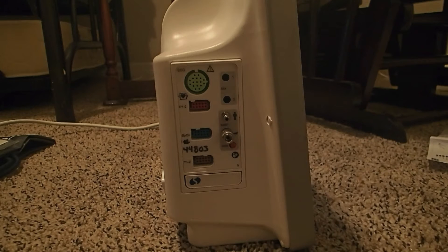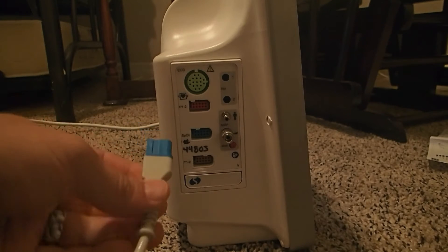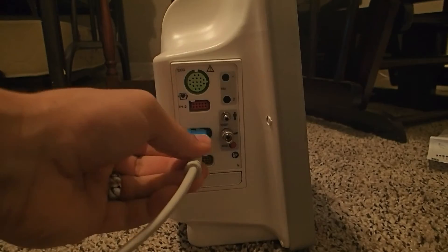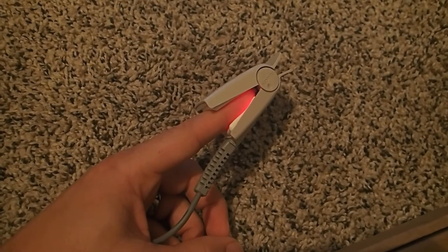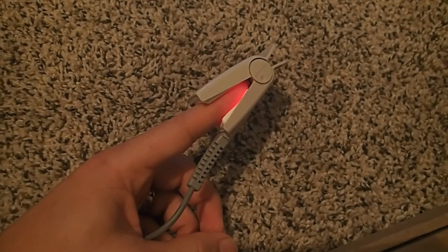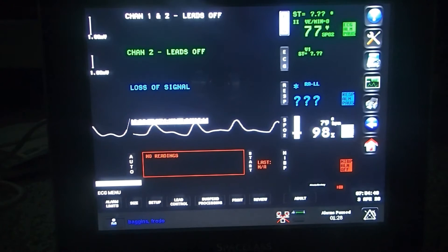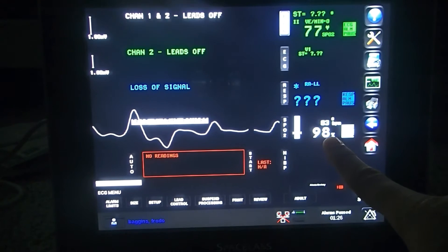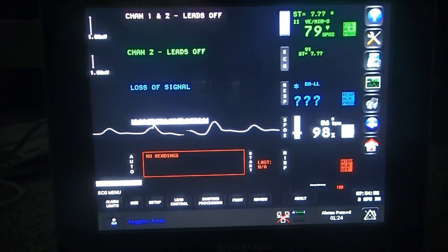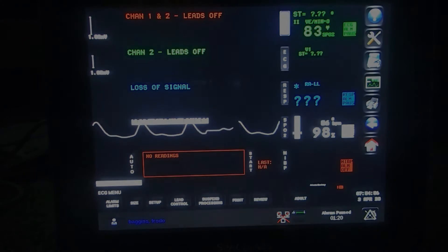Now the next thing we're going to do is monitor SpO2. Make sure we have our SpO2 connector. I've gone ahead and connected the SpO2 monitor to myself. And here you can see my SpO2 is coming in at 98%, 86 beats per minute.